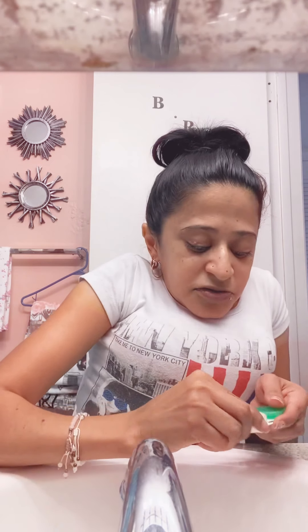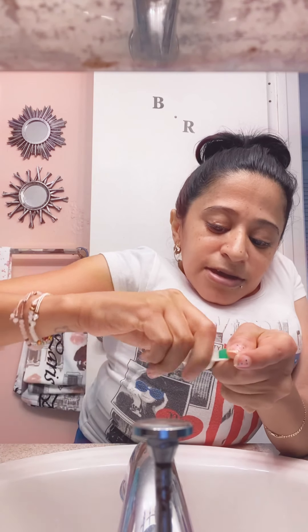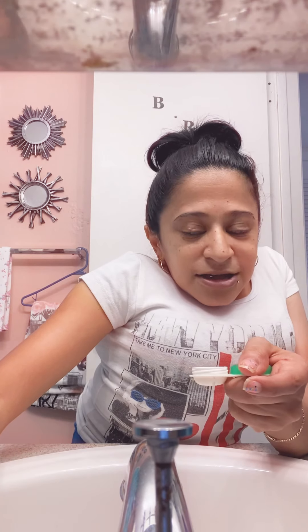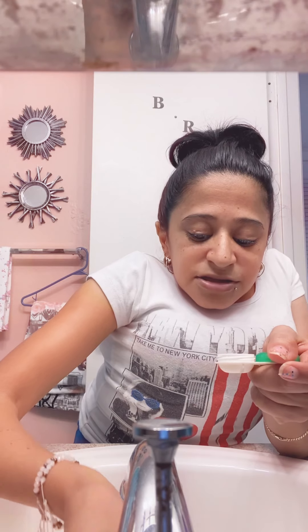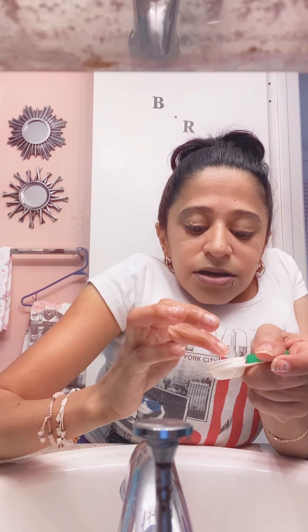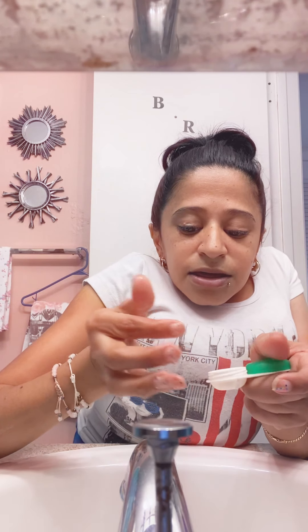I'm going to go ahead and start. First, I'm going to make sure that it doesn't go down the drain. Then I open it. These are my gray ones, the most that I use. I make sure I clean this way a little quick, the top as well. Then I place the water in and I clean.